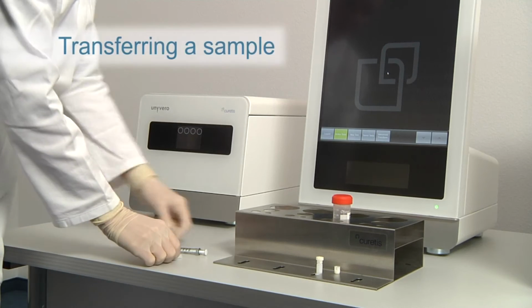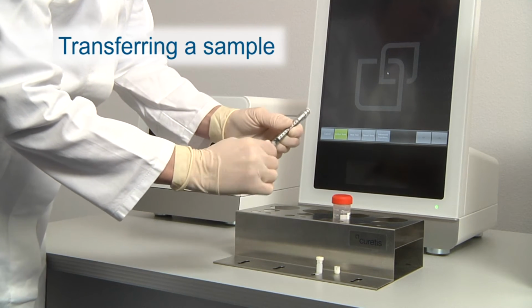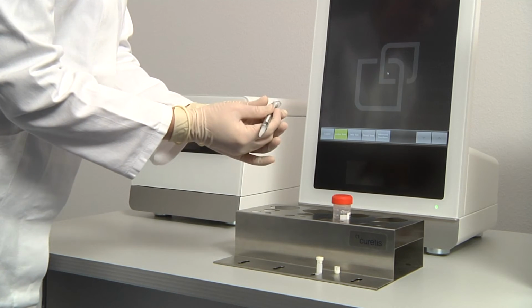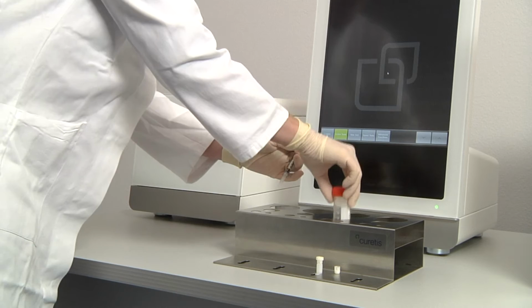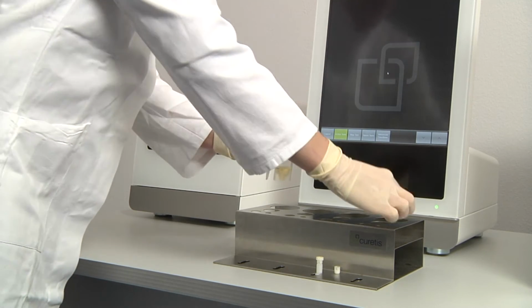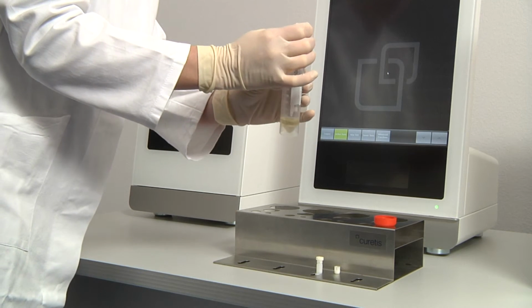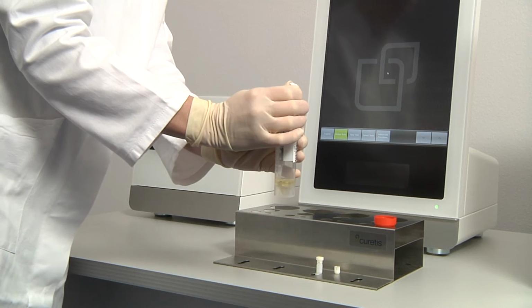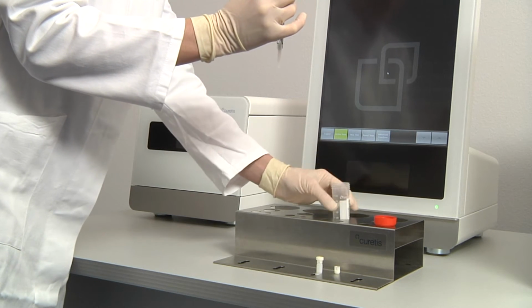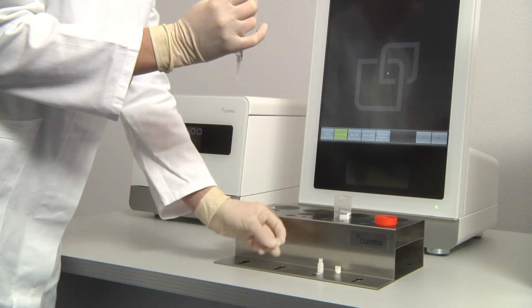To transfer a viscous patient sample, you will need the Unyvero sample transfer tool, which you should screw tightly onto a Luer-Lock syringe. Otherwise, you can use any calibrated pipette you are comfortable with. Take about 180 microliters from the patient sample and transfer it into the Unyvero sample tube. To do this, first remove the transport cap of the sample tube and slowly inject the sample into it.